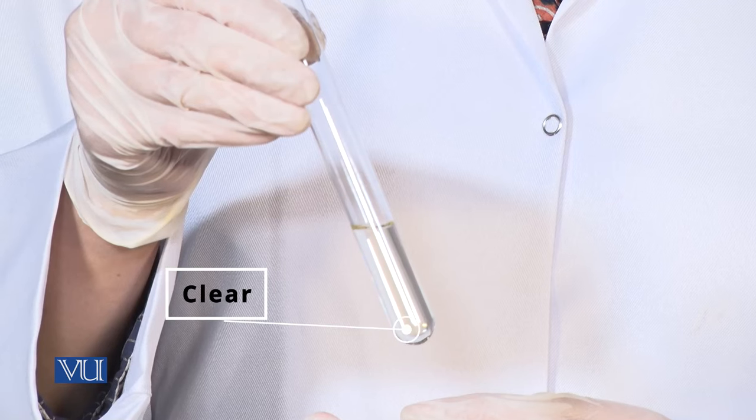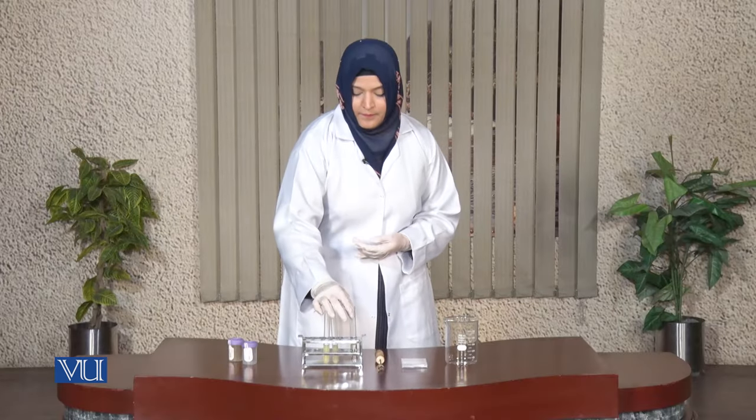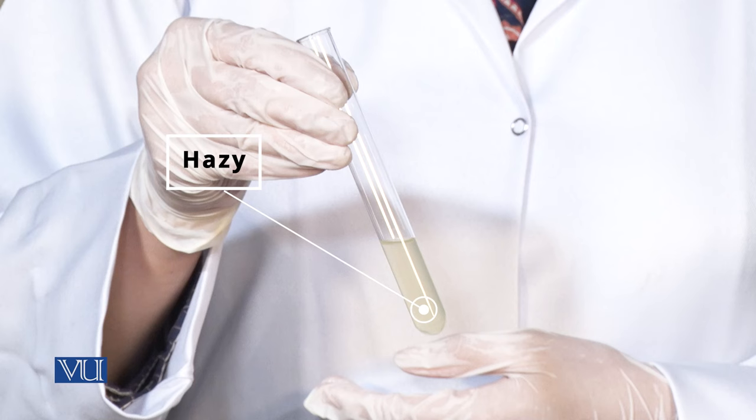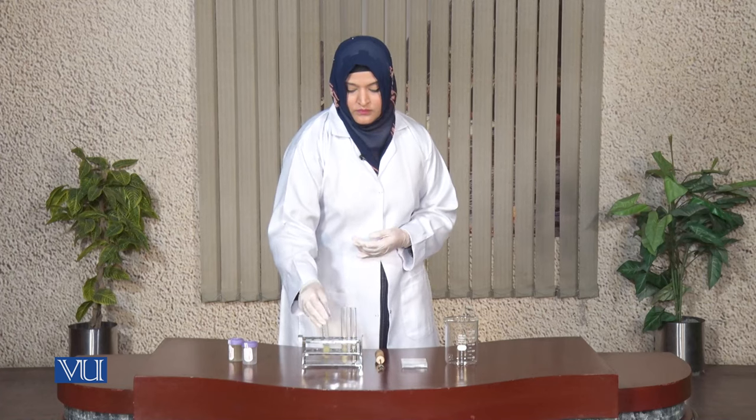Clarity is an indicator of the transparency of a specimen. To observe the clarity of a specimen, you should observe the sample while light is passing through it. The general terms used for describing the clarity of a urine sample are: clear, hazy, and cloudy.